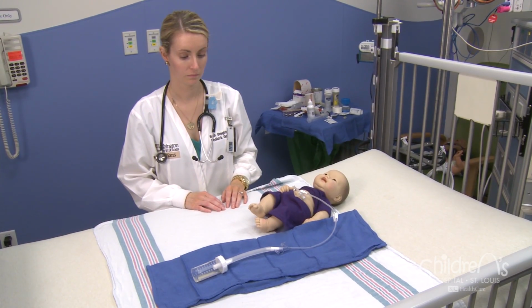Even without eating or drinking, the stomach normally makes juices. Draining these fluids prevents the stomach from getting too full after surgery. Usually, your child will not take in fluids by mouth or by the button for the first 12 to 24 hours after surgery. This helps relieve nausea from the anesthesia and allows surrounding tissues to begin healing. It will take about 6 to 8 weeks for the gastrostomy tract and the surrounding tissues to heal completely.